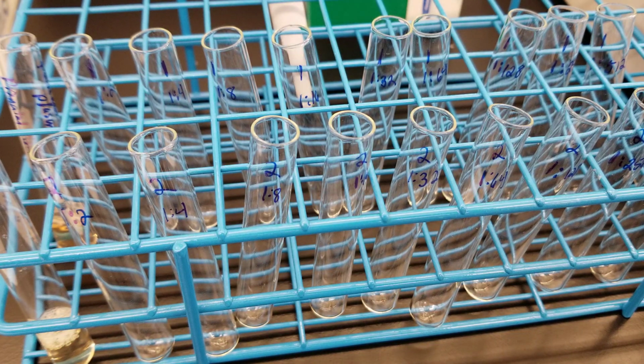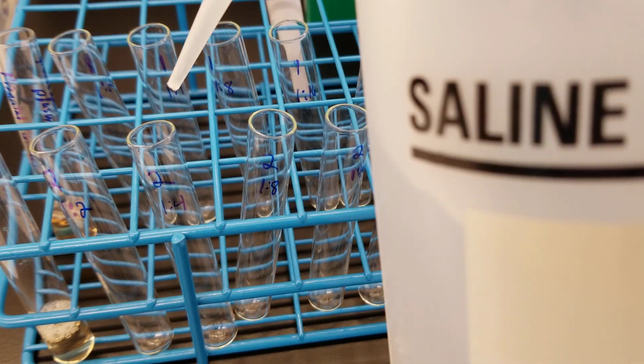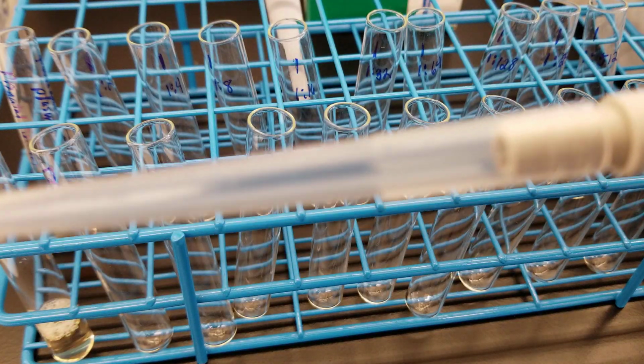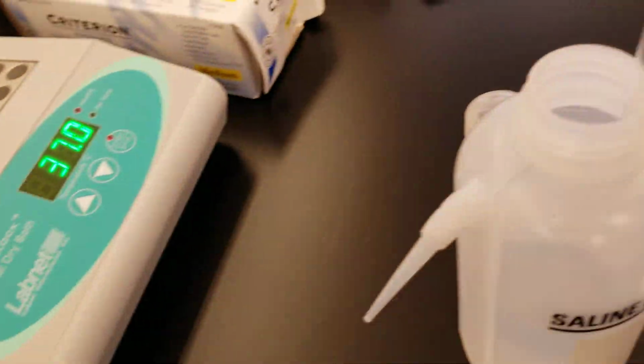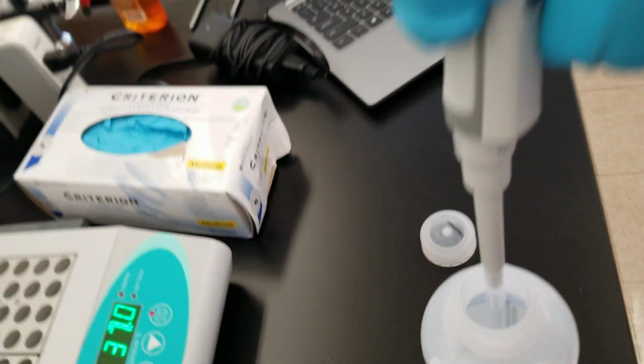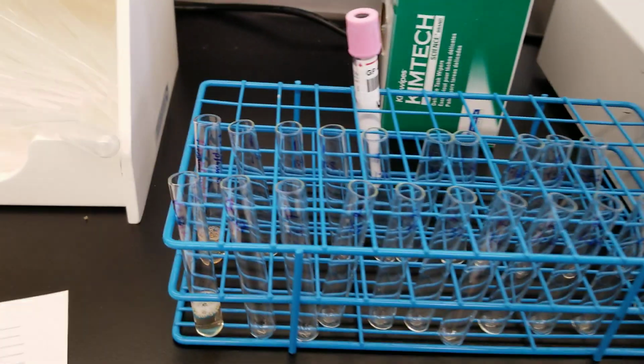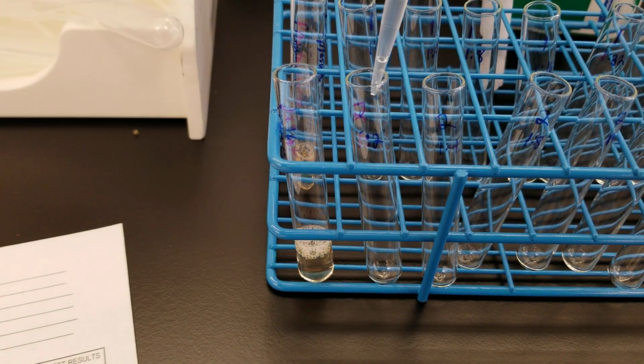Okay, so here we have first the titer that you need to do. And so we're going to use normal blood bank saline. Okay, I'm going to stick my pipette that I now have a tip on down into the saline. So I'm pressing down right here first. Down into the saline, make sure it's in there, and I'm going to pull up, and we're going to put saline into each of the tubes.